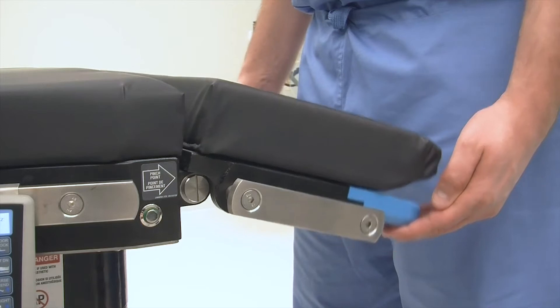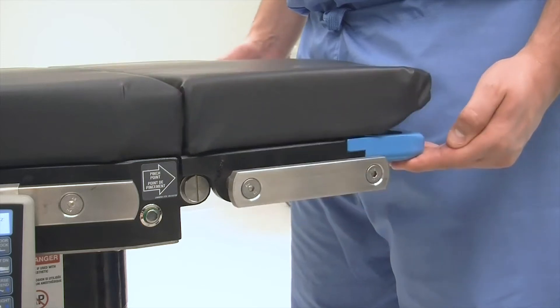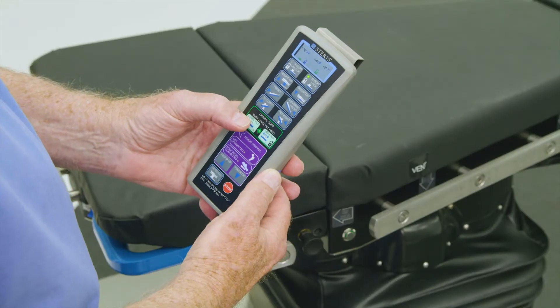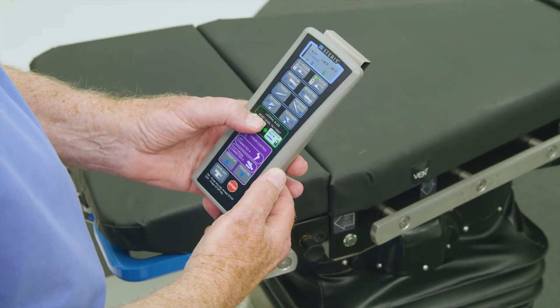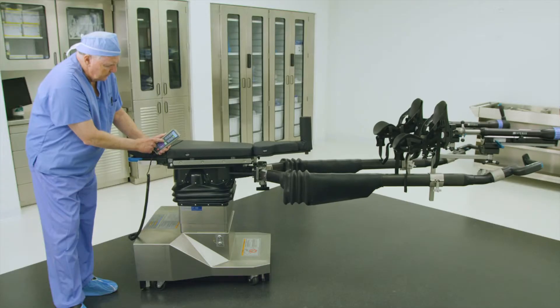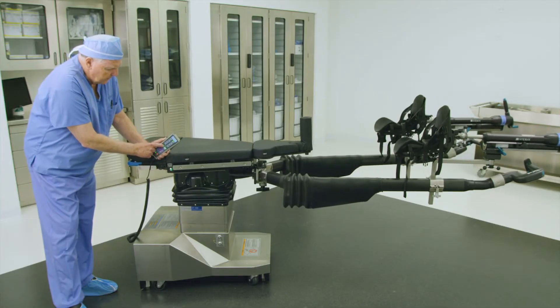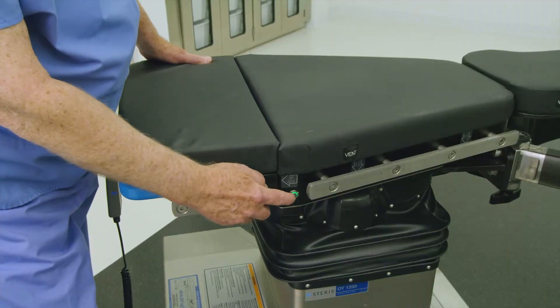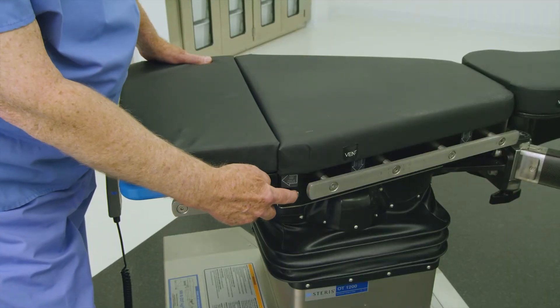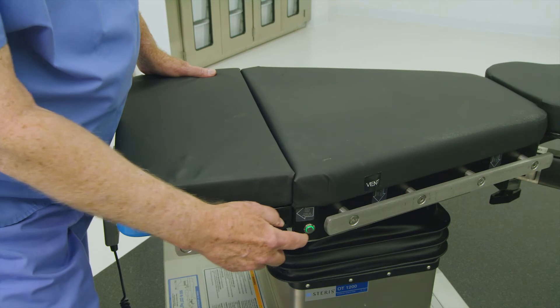First, ensure the head section is level and manually adjust as needed. Next, press the level tilt button on the hand control to ensure that the tabletop is level. The preferred method to translate the tabletop is through the illuminated buttons on the side of the tabletop.